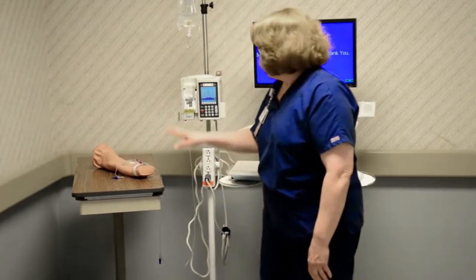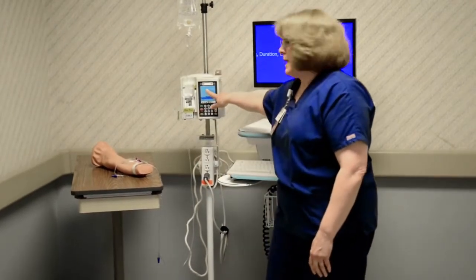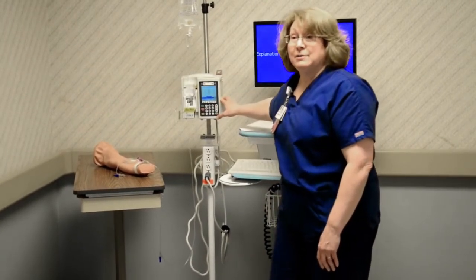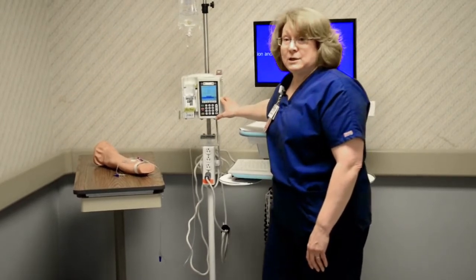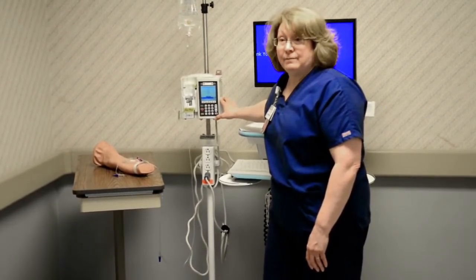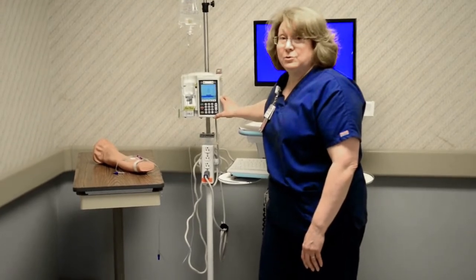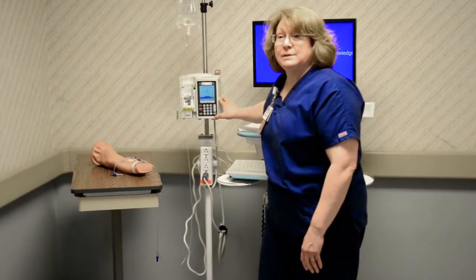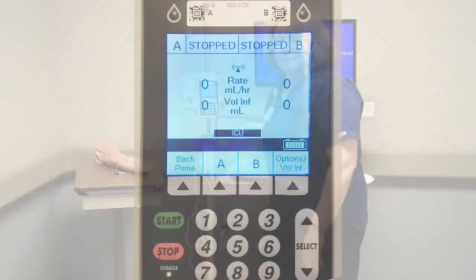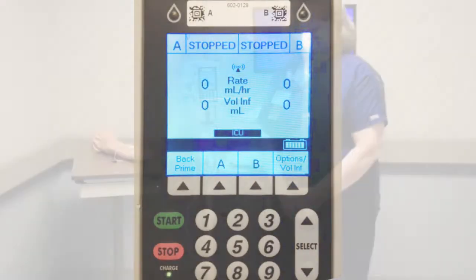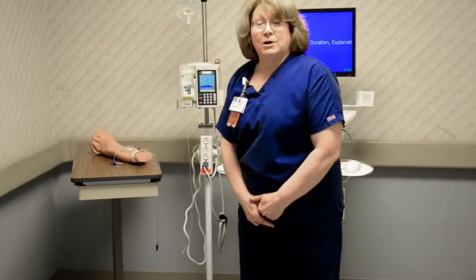we need to make sure that there is a wireless connection, that no pump alarms are sounding, the pump is in the stop mode, and that you are on the stop screen, and the IV channel to be used is clear, including any volumes that have been already infusing. So basically your screen should look like this.